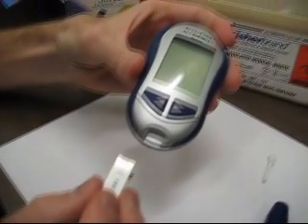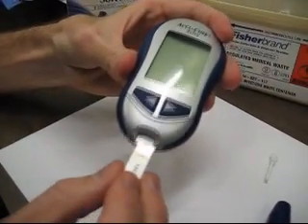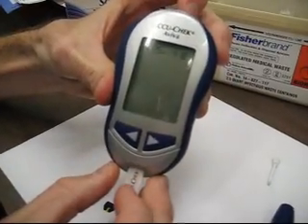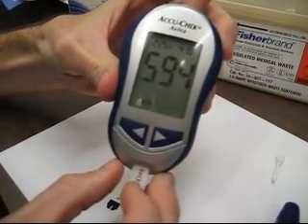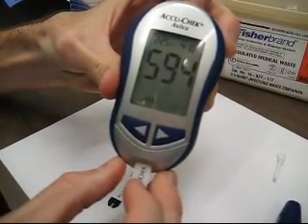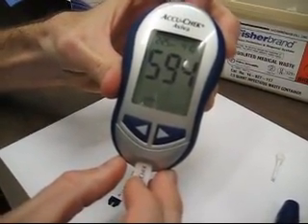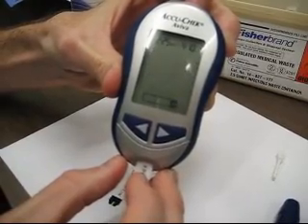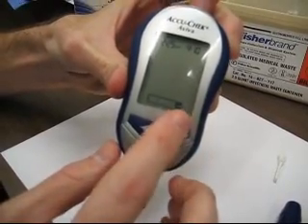Place a new glucose test strip into the glucose meter. It will begin flashing a glucose test strip with a little blood drop when it's ready.